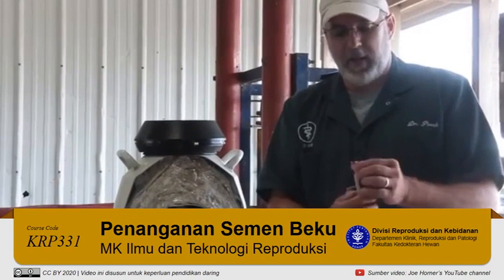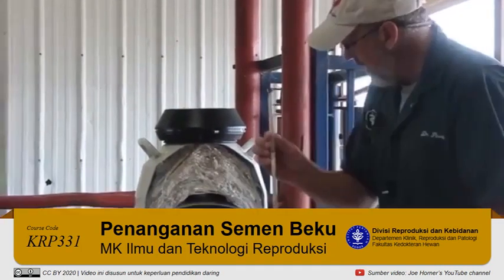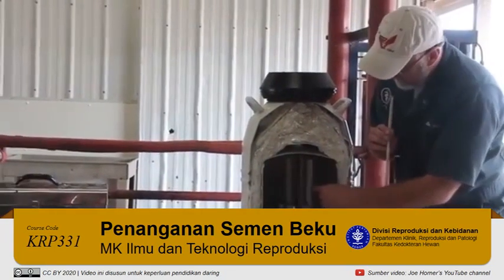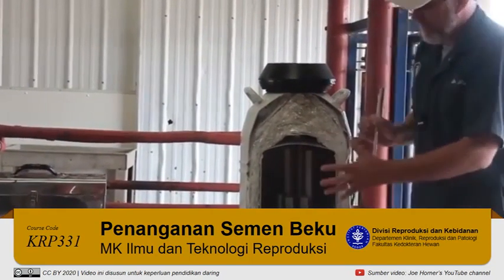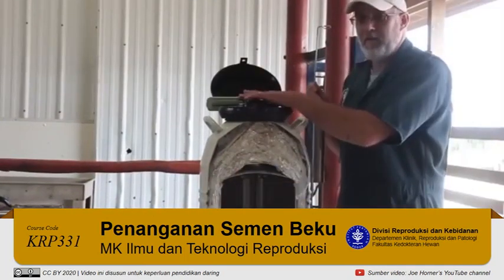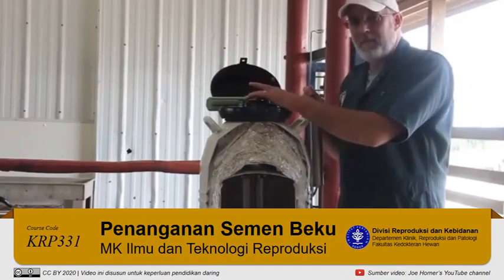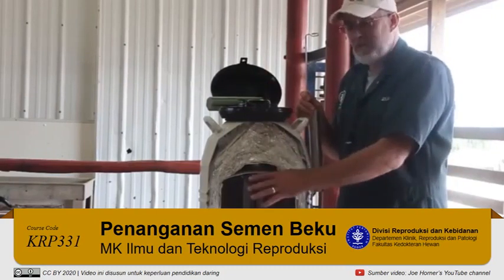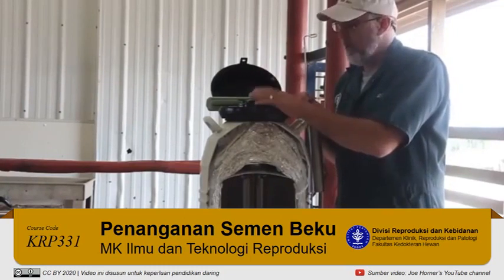On the top of the cane is his code number 237AR 1149. The cane goes into a canister — here's a cut-off canister and here's a full canister — and this shows how it sits in the liquid nitrogen tank. There's a great range of temperature from down at the bottom to up at the neck. You want to minimize the time up in the neck, because even though we're still below freezing, that change in temperature from minus 300 to almost zero can cause some damage to the sperm and the semen.